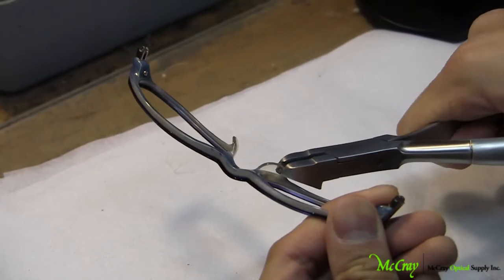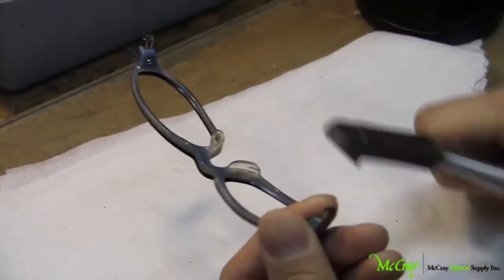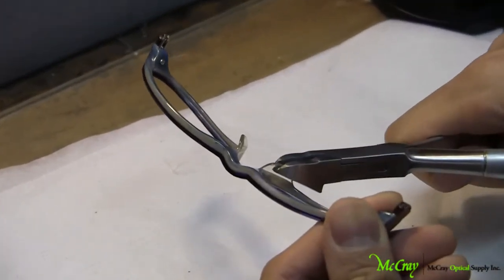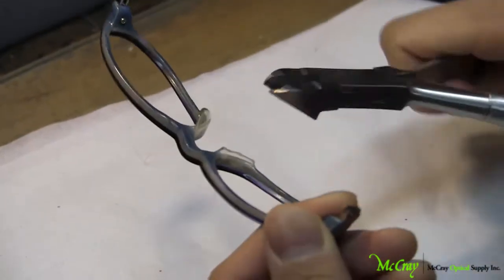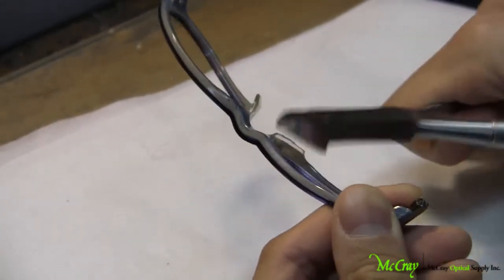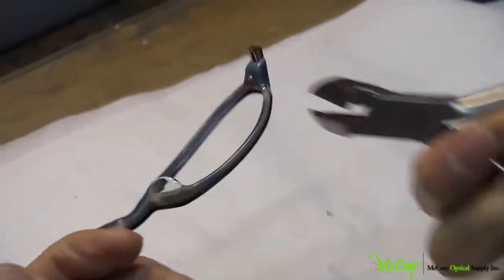I'm just going to do a small demonstration of exactly how you cut it first. Just do a small snip, and as you can see, there's already a set dent there, and I'm just going to go over that again, and very easily it snaps right off. I'm getting rid of that little small part there, and I proceed to do the other side as well.